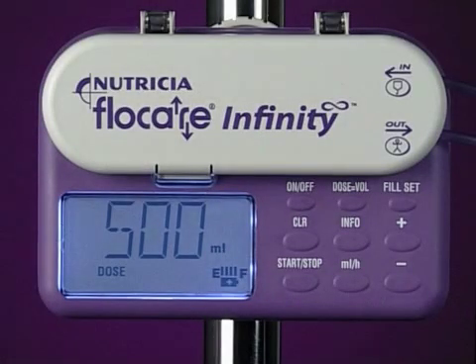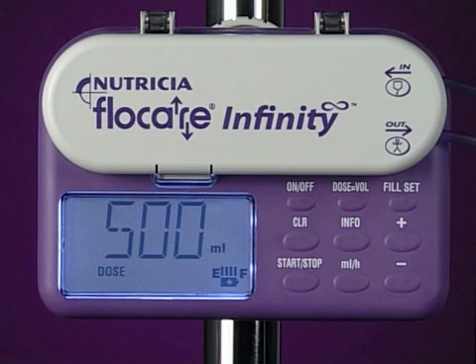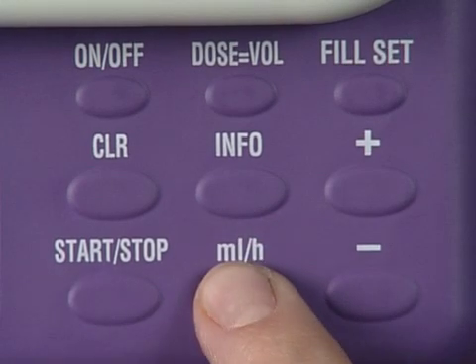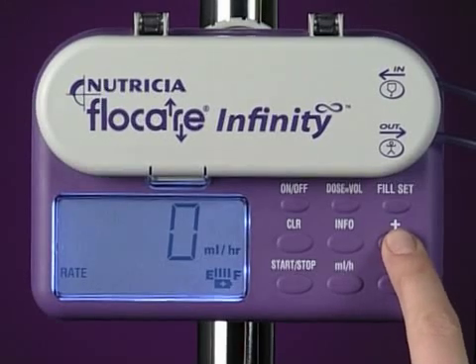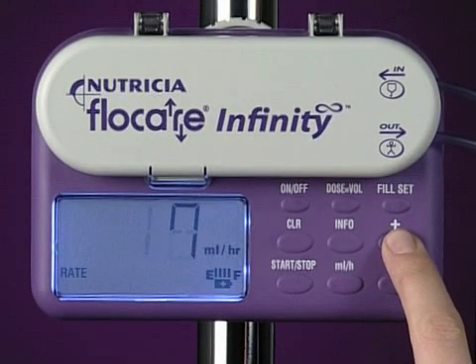Let's move on now to programming the pump. We'll start by programming a flow rate. Normally, when in hold, the pump will display the flow rate. If the display shows any other parameter, then press the milliliters per hour key. Then simply use the plus and minus arrow keys to change the flow rate.